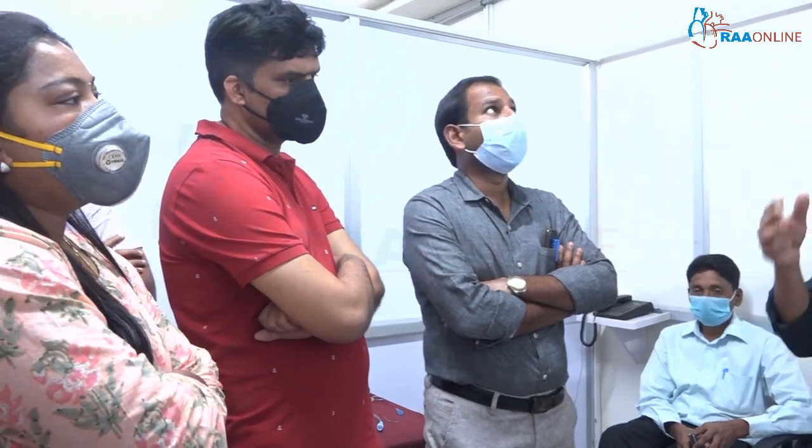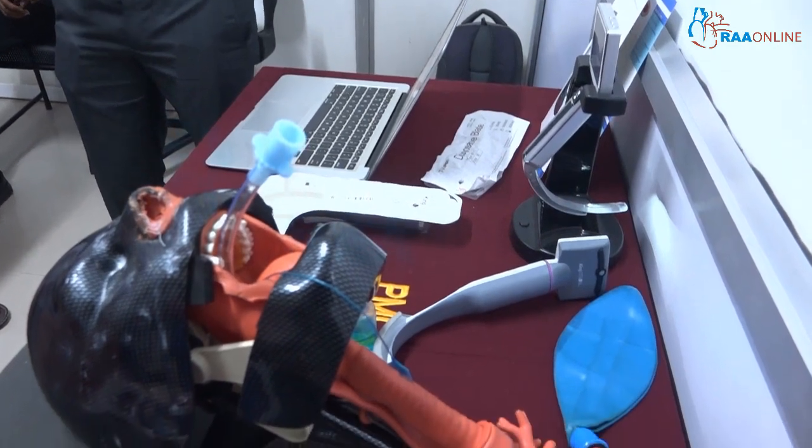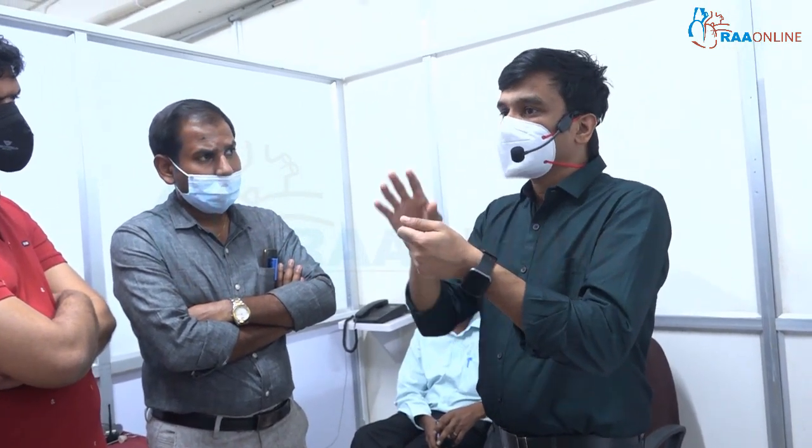Video laryngoscopy also results in lesser suspension pressure, which is useful in coronary artery disease or when you don't want to apply too much pressure. The disadvantages include depth perception — your hand is here, your monitor is over there, and you have to manipulate based on what you see elsewhere. With direct laryngoscopy everything is at one point. Depth perception becomes much more difficult with video laryngoscopy.